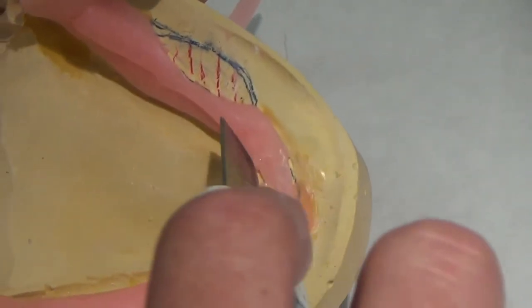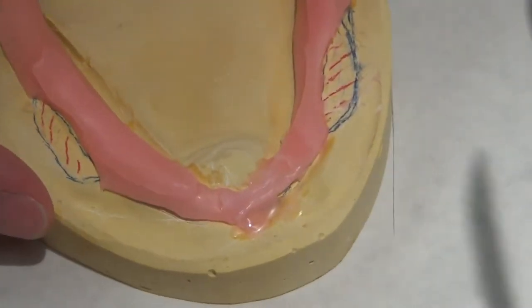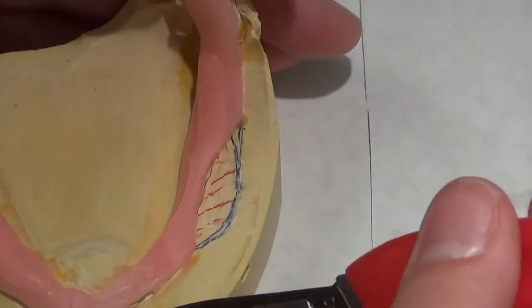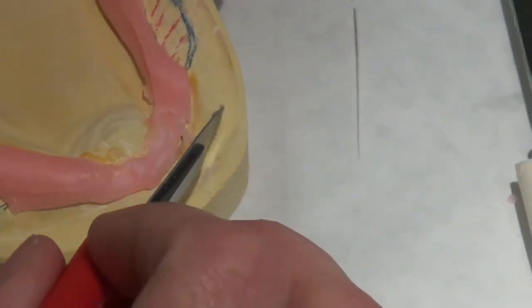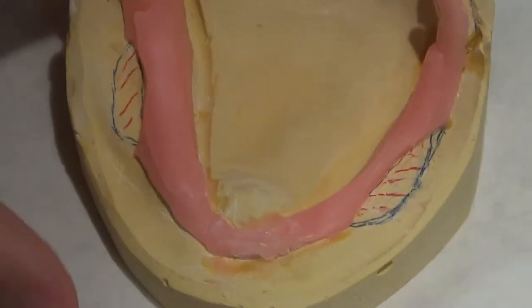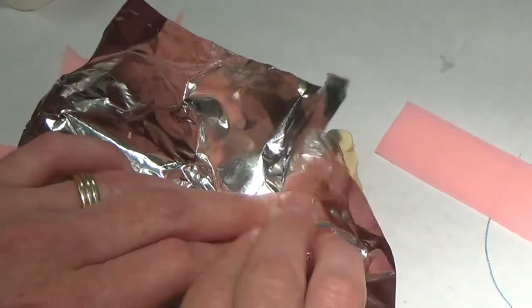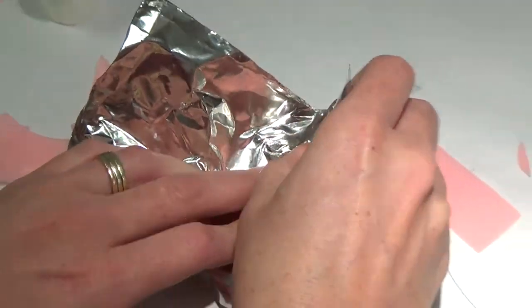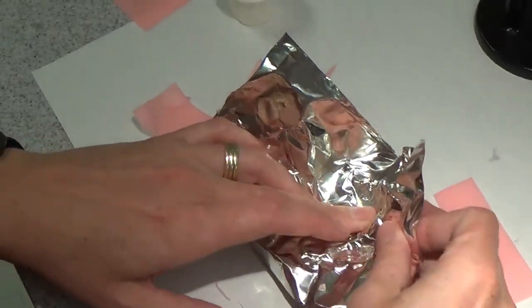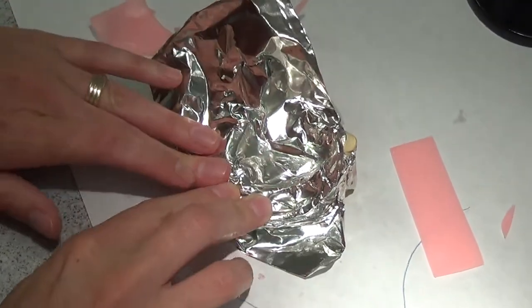That was an accident — I wanted to fill that area but I didn't need to add that much. Just because that area is getting pretty thin, I don't want to risk it. You can see I'm just manipulating the wax while it's still warm. Put my tin foil on. Tin foil really likes to tear here, so I like to get it down in the middle first and then extend toward the sides — you just have to tug and play on it and it'll eventually work the way you want.